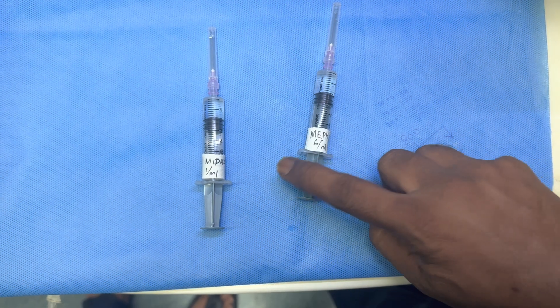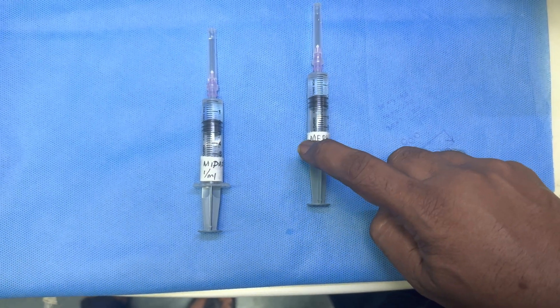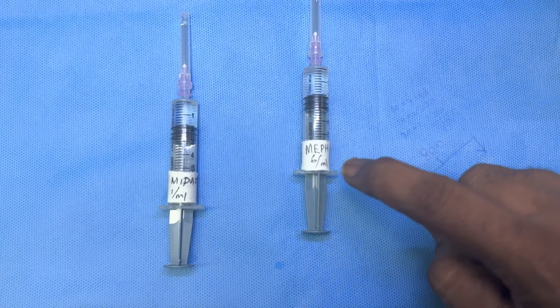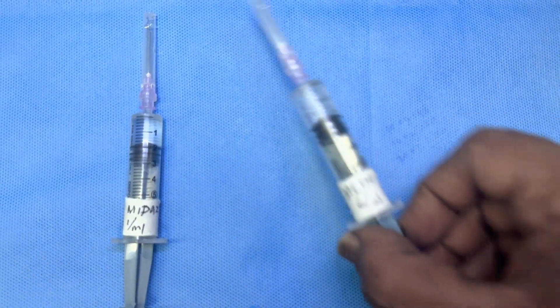Whenever your syringe is stable lying down, the drug name and the whole label should be visible here along with your measurement divisions.